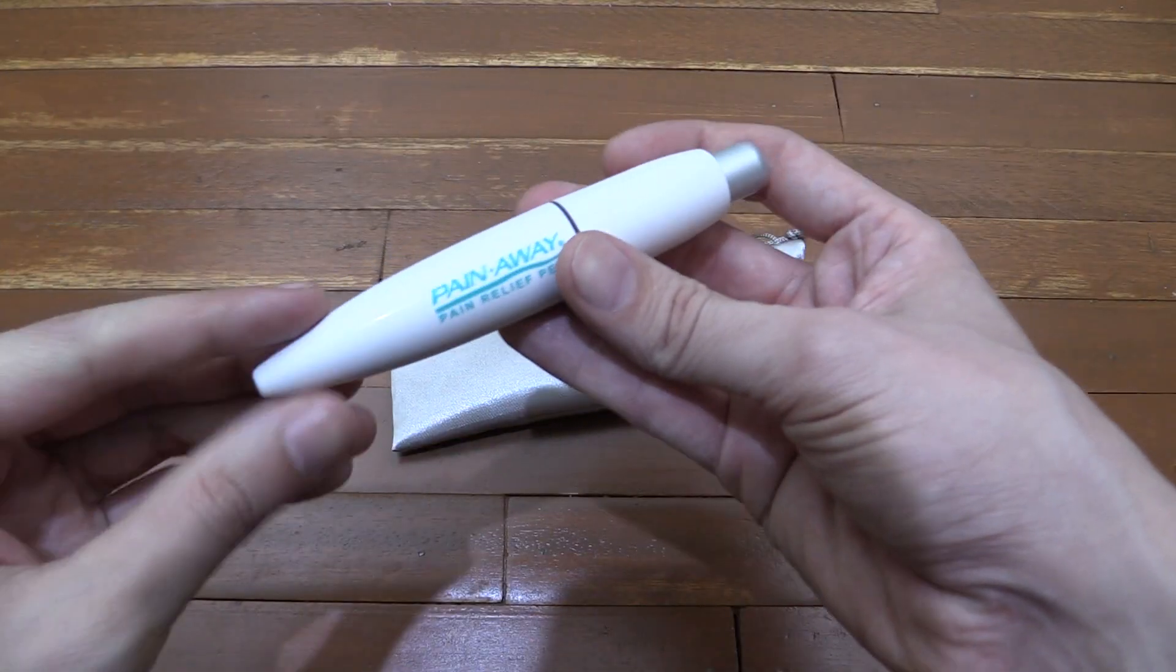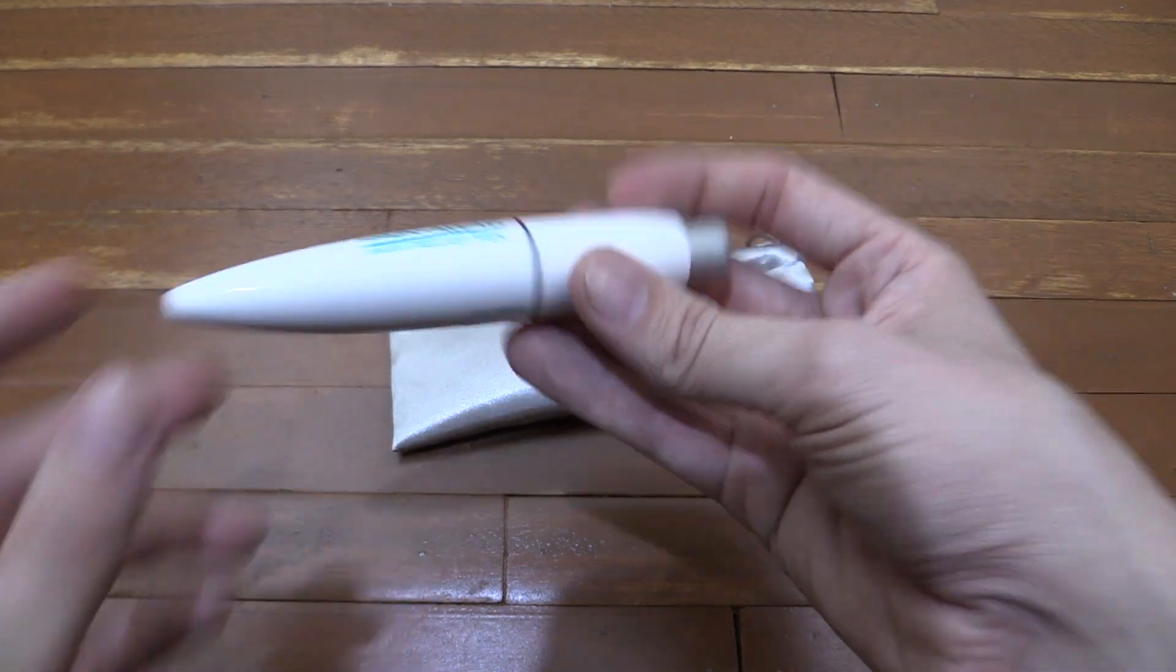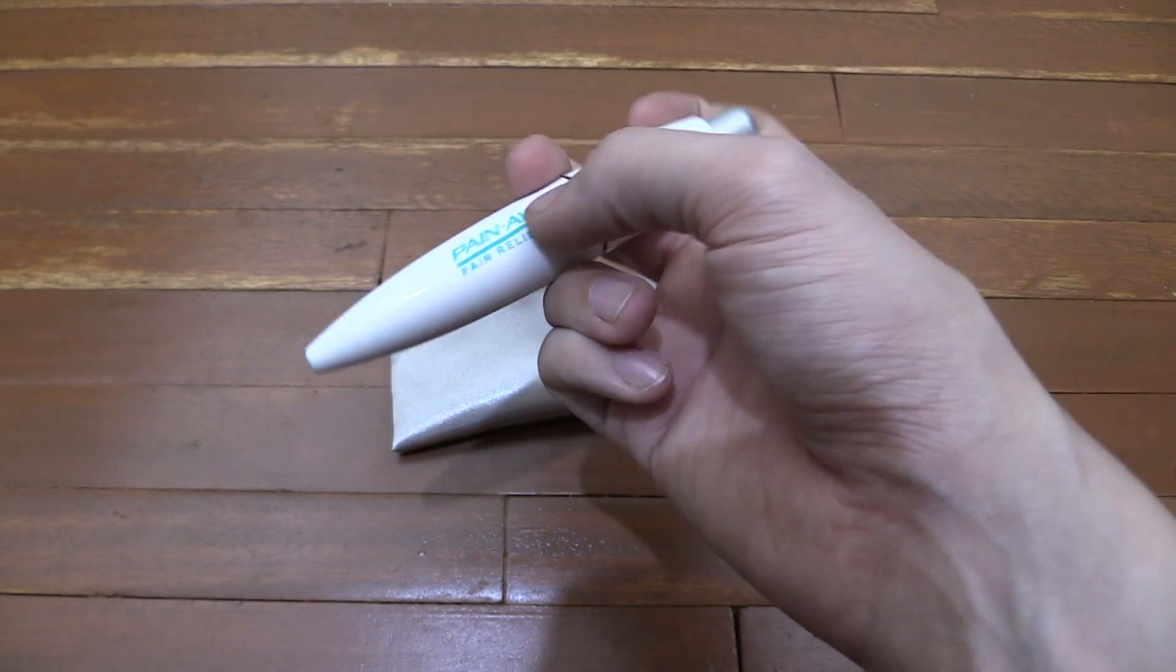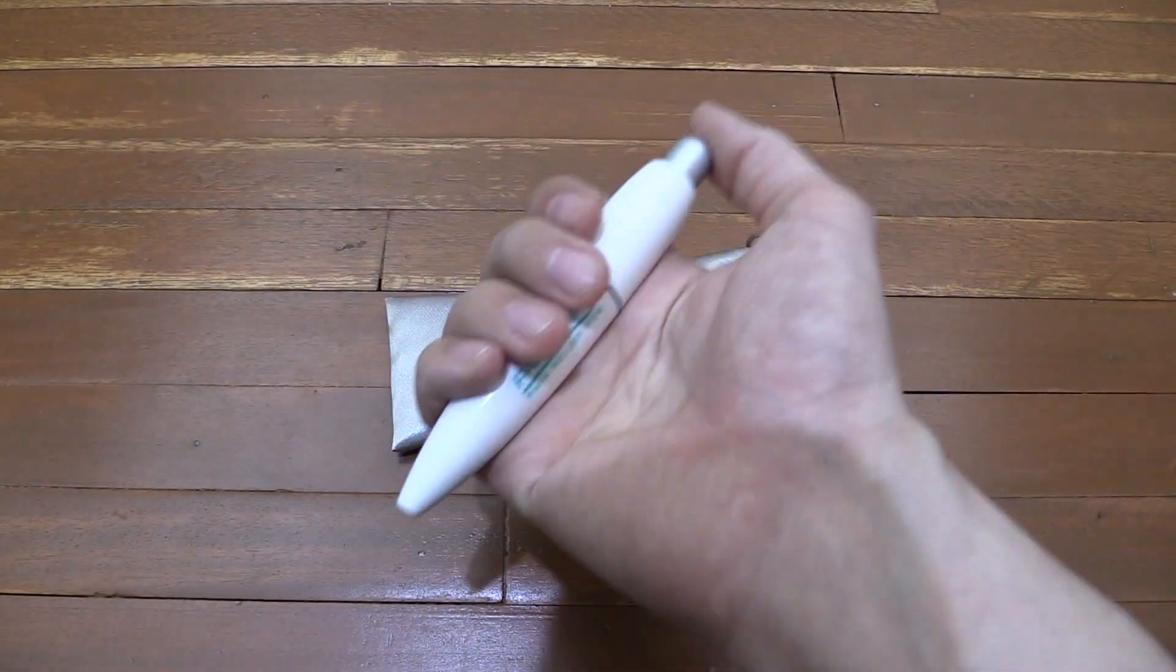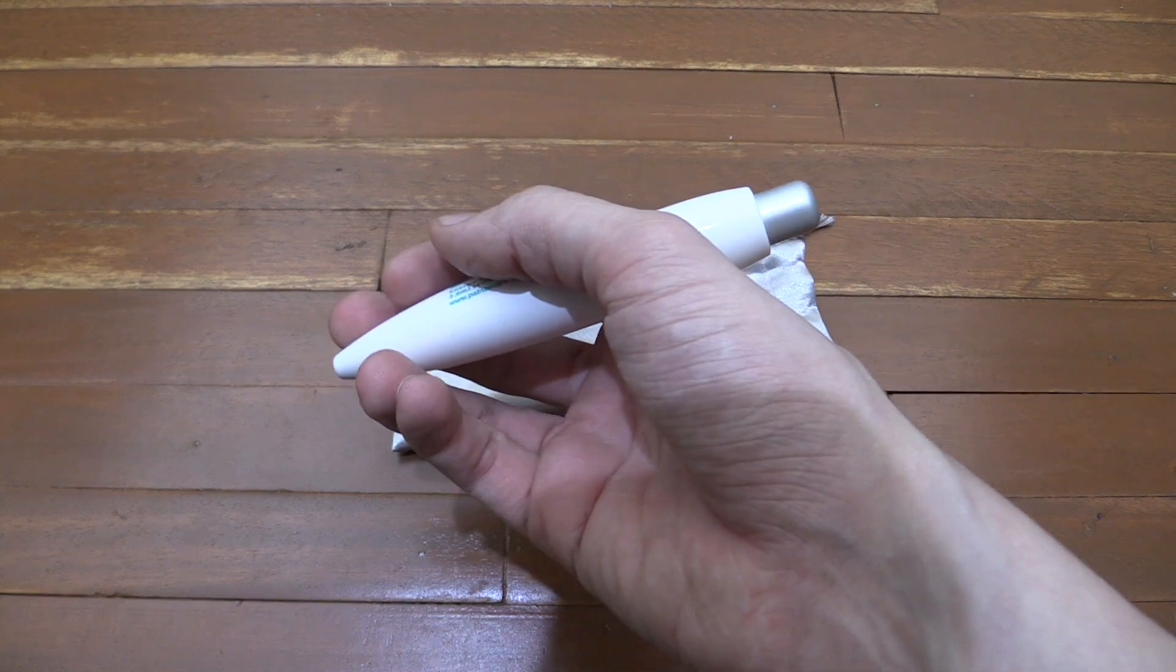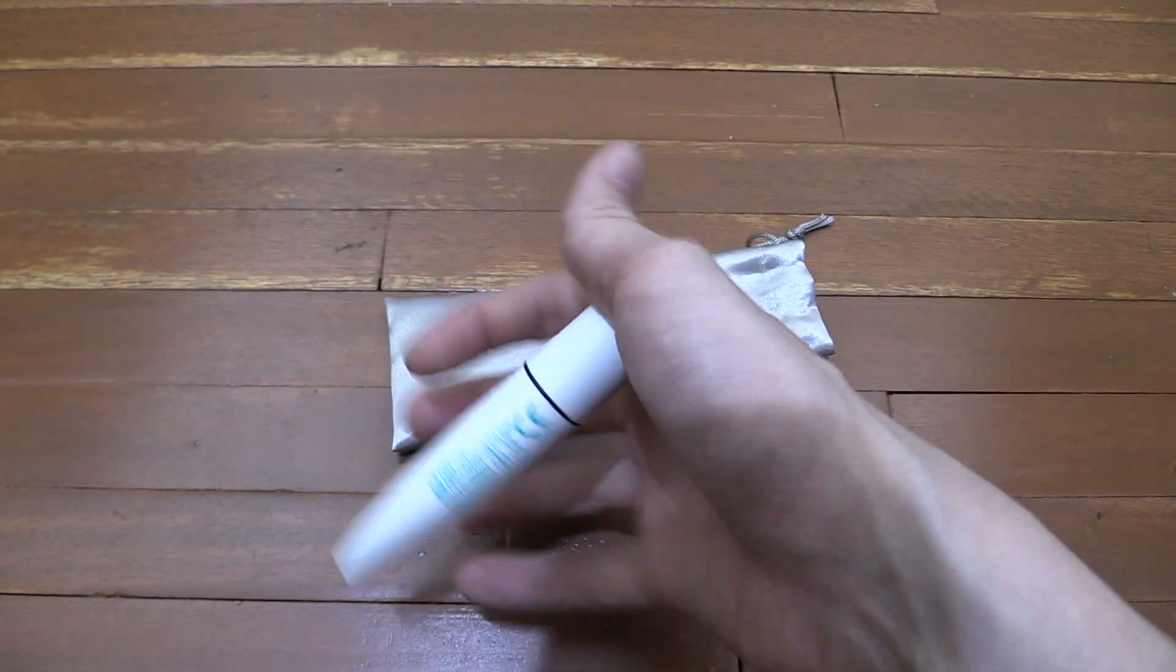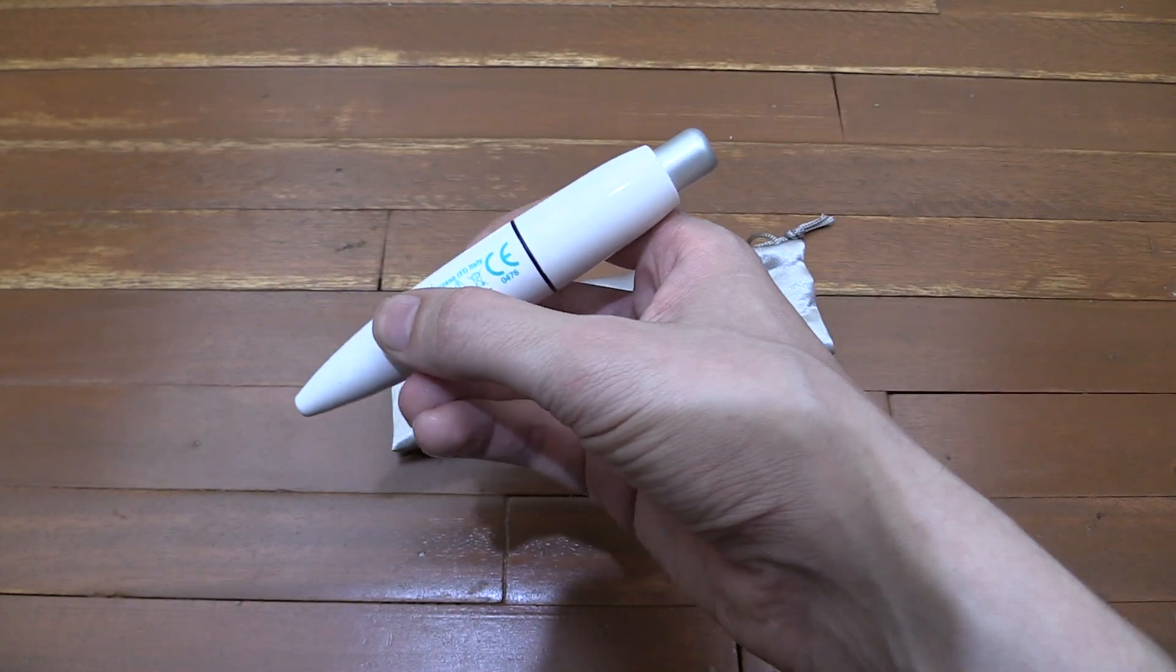There's no batteries inside this device and although it comes with a two-year guarantee, I think it would last pretty much forever. Inside you've got a quartz crystal and each time you click it, you're crushing that and creating the electric shock. Very similar to when you use an electric lighter with the push down button, same kind of principle in design.